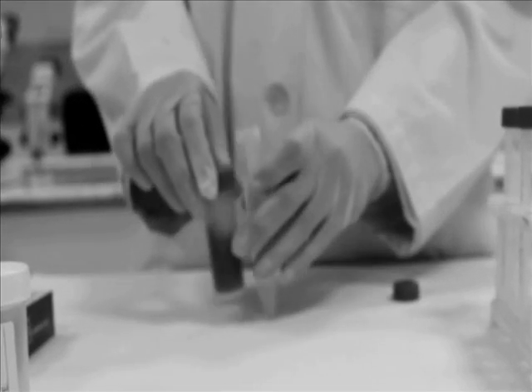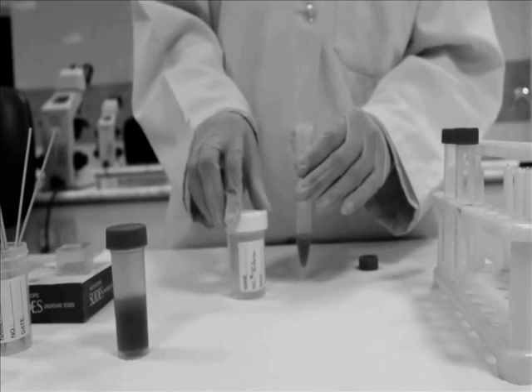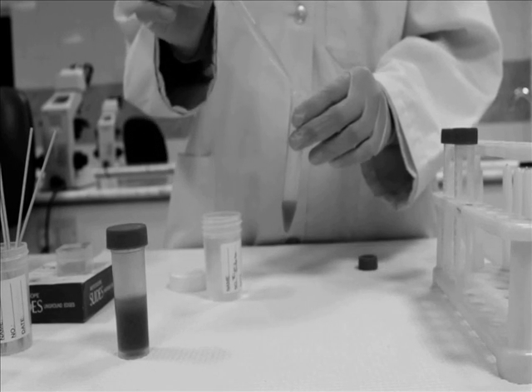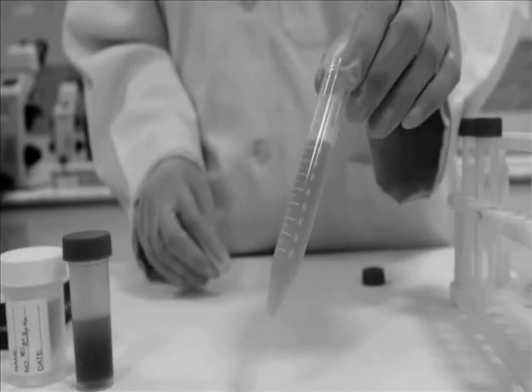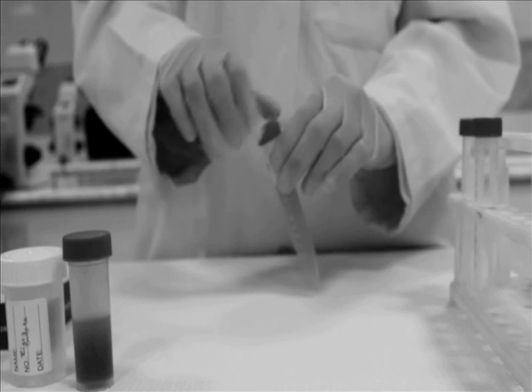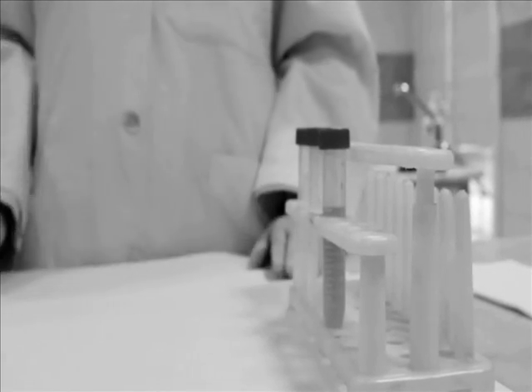Take this centrifuge tube. Add 2 milliliters of stool sample. Then fill the tube with zinc sulfate solution to 10 milliliters. Close it and mix well.